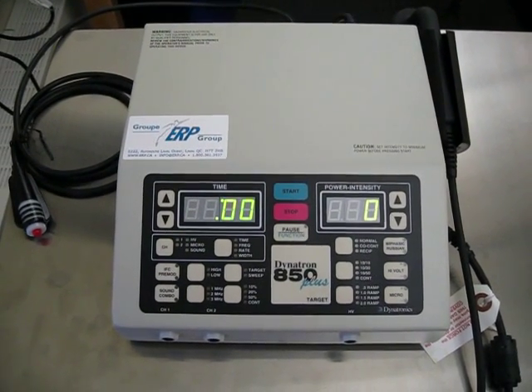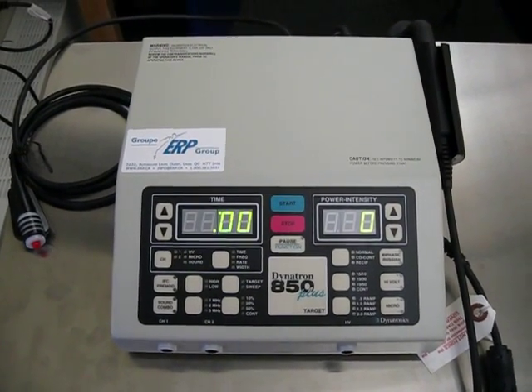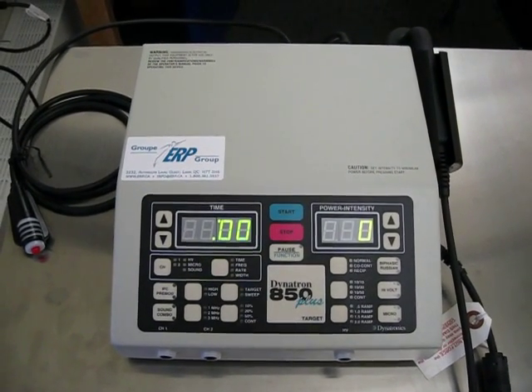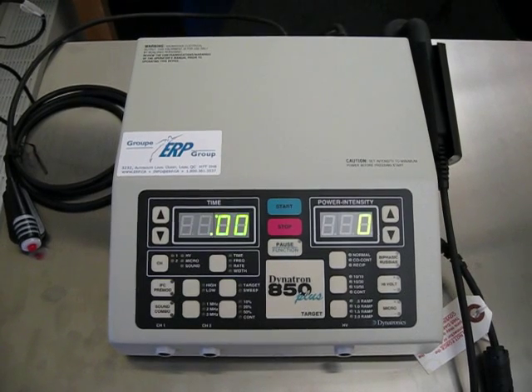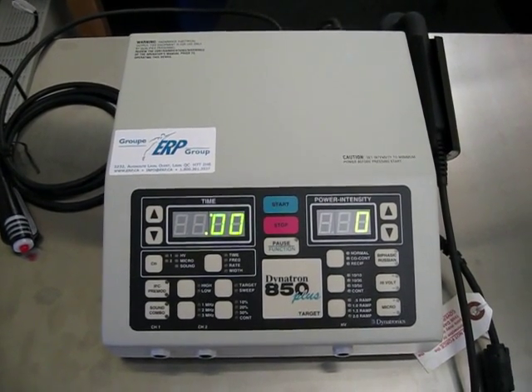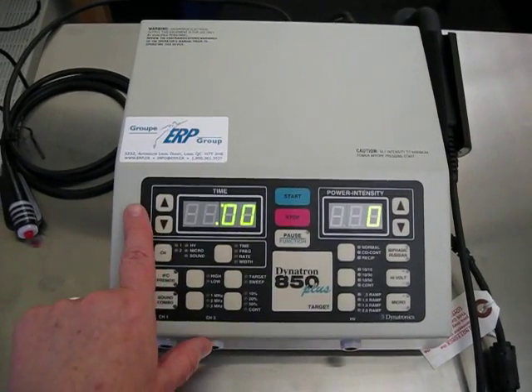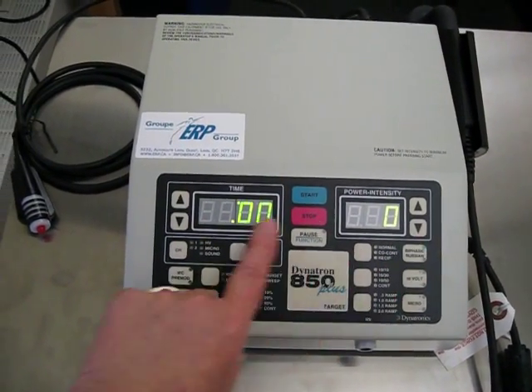I'm going to give you a little bit of information about the combination machine. When we're using it for interferential, you are going to see that when you plug it in and turn it on, this is what you're going to start with.